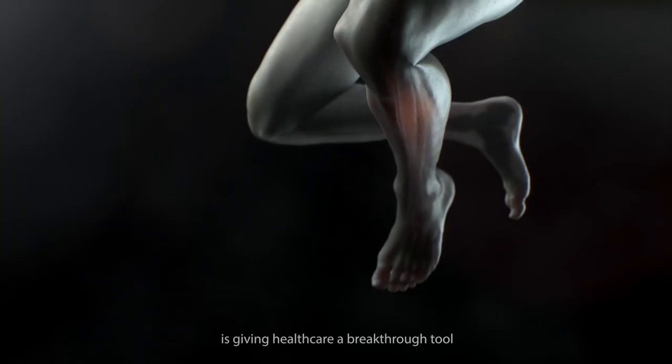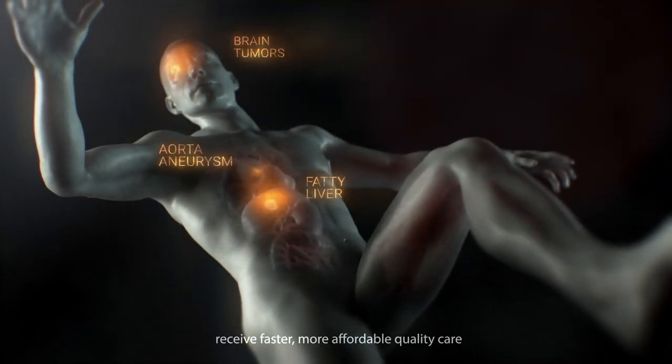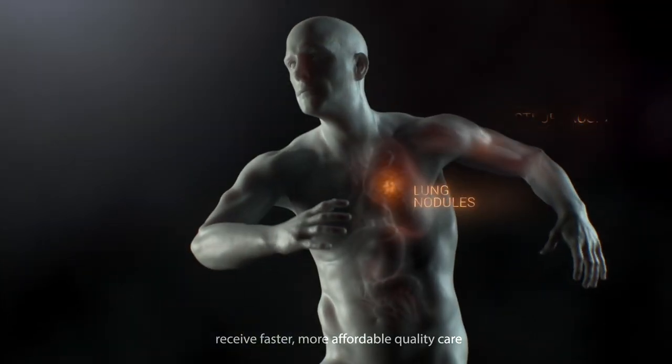Zebra Medical Vision is giving healthcare a breakthrough tool to help millions of people receive faster, more affordable quality care.